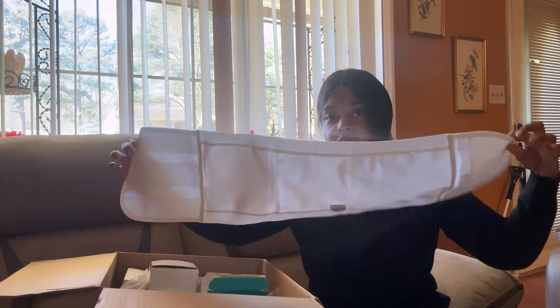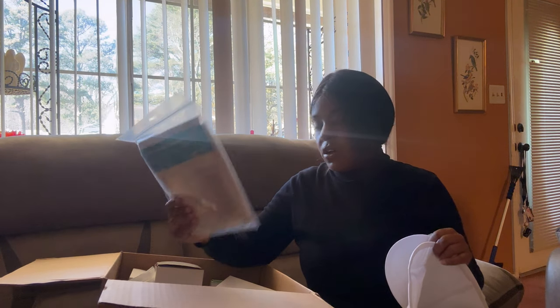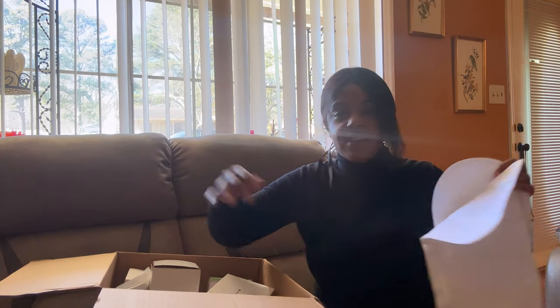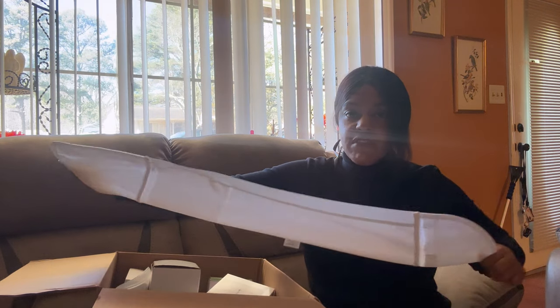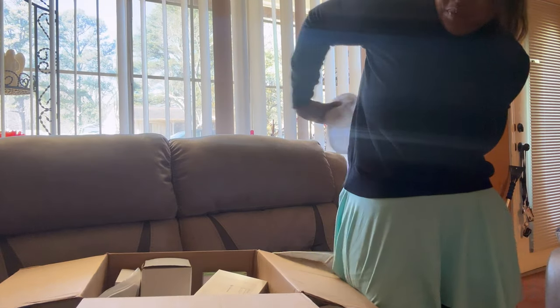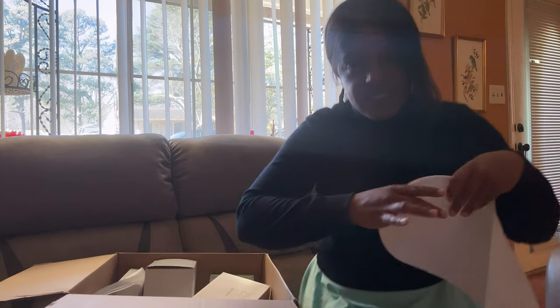The first thing I got is two of these Brava ostomy support belts, both in small. I am not that big for an adult — I feel like I'm more of a tiny adult — and this barely fit. It only fits if I stretch it and make it super tight. I have two of them and I'll probably end up giving them away, but I might need them.